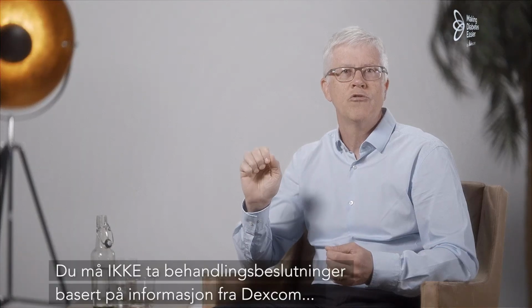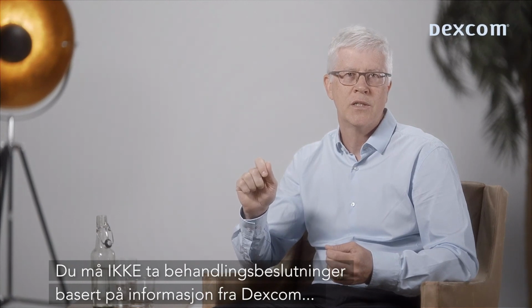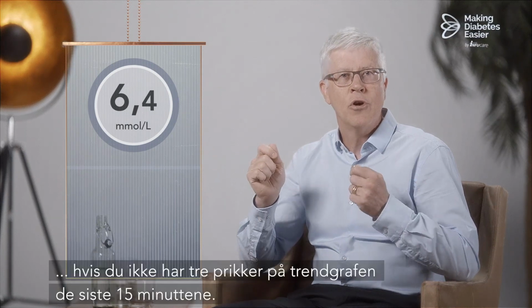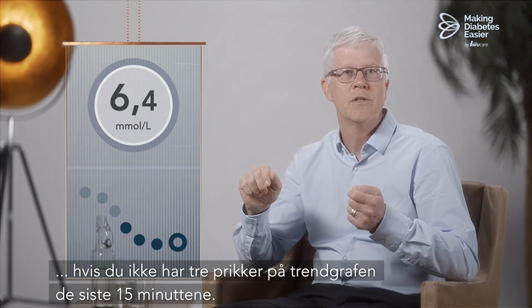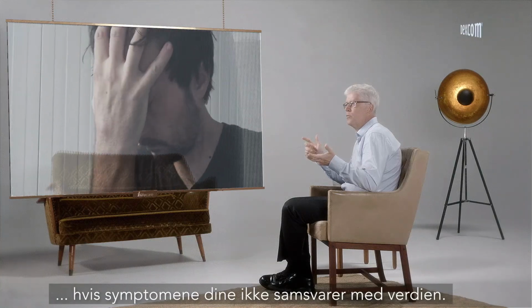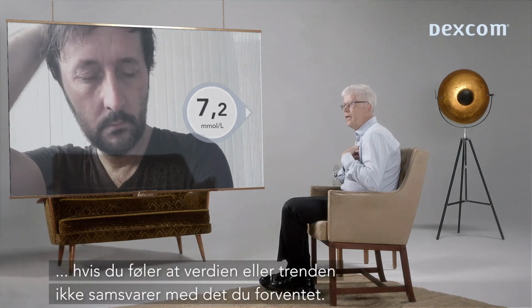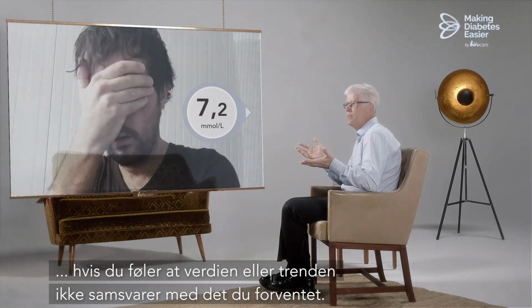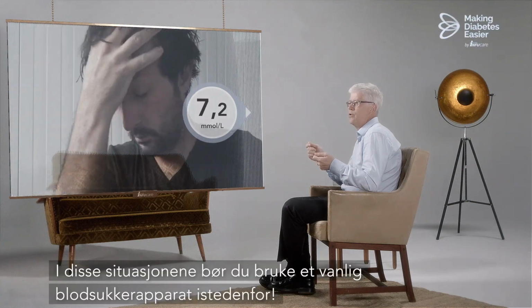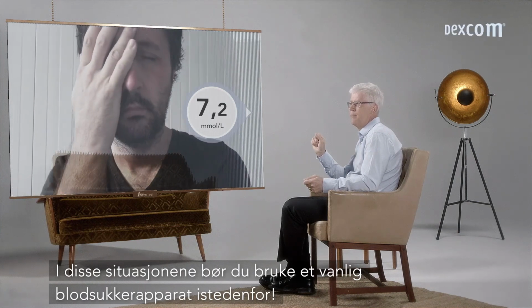Do not take treatment decisions based on the information from the Dexcom G6 if the arrow is missing, if you don't have 3 dots on the trend graph in the last 15 minutes, and if your symptoms do not match the value, if you feel that the value or trend does not match what you expected. In these situations, you should use your ordinary blood glucose meter instead.